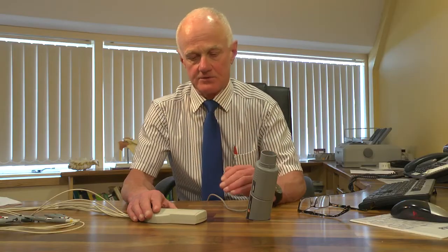The big advantage of these devices is that it's quick and easy to actually take the ECG or in this case the spirometer. It is easy to see all the data by all doctors in the practice once it's done. In other words, once the ECG is taken, all doctors anywhere in the practice can see the results immediately. There's no need to do a double entry — no need to print out your ECG and scan it into your computer.